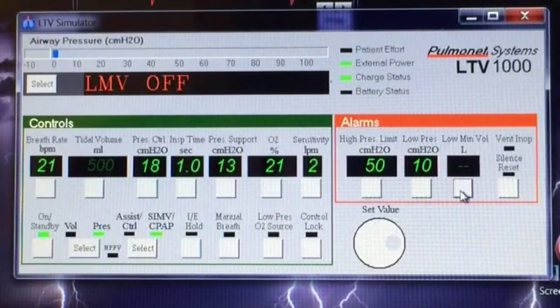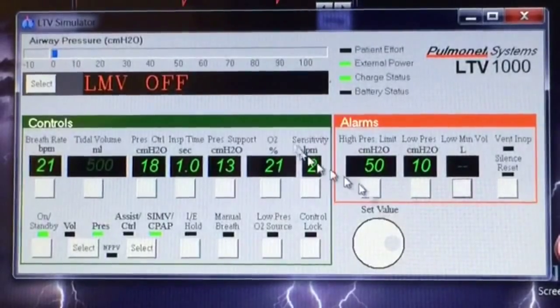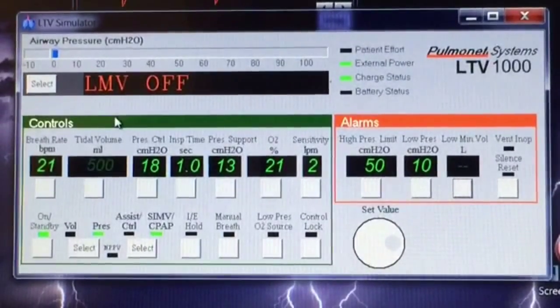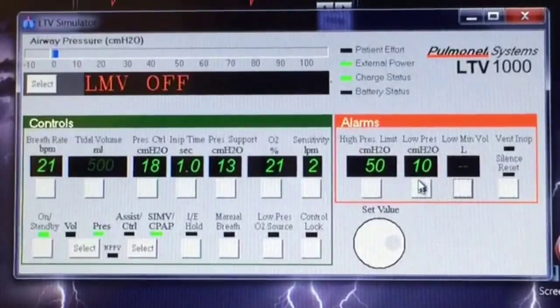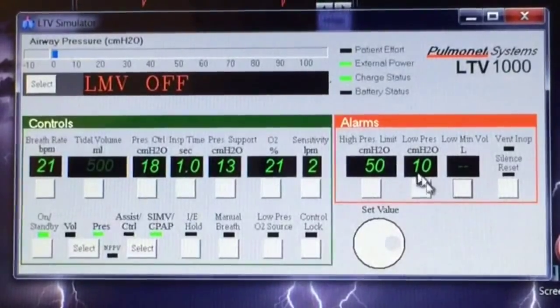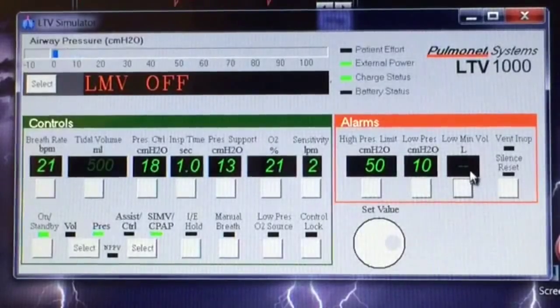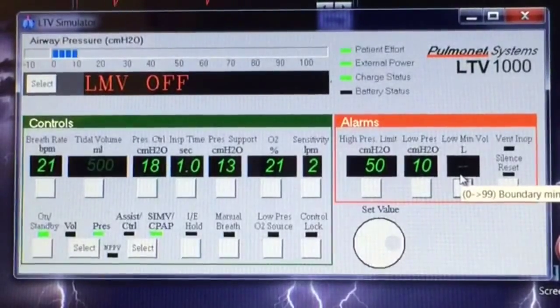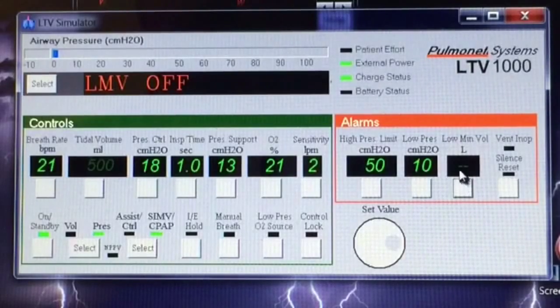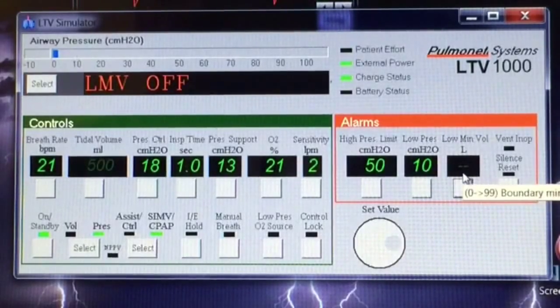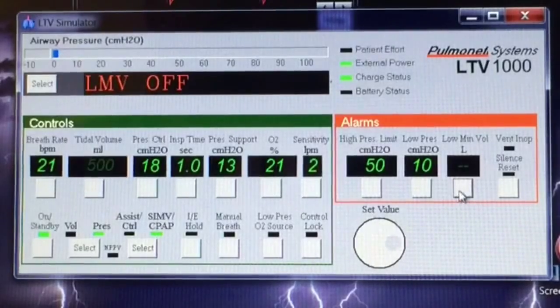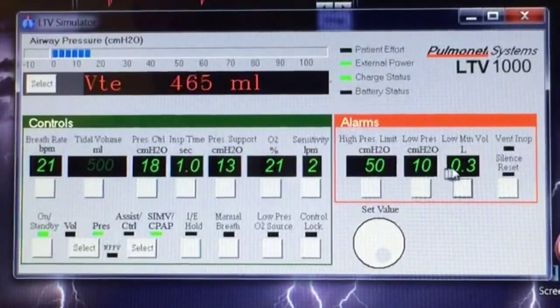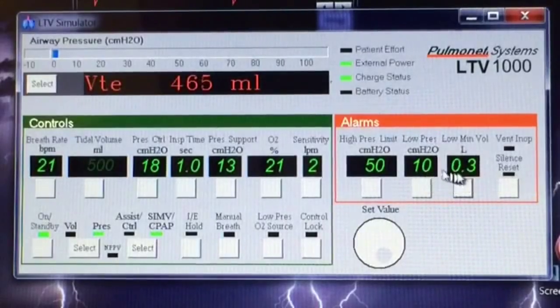The low minute volume alarm — the minute volume is how much air goes in and out of the patient's lungs every minute: all those breaths of air added up for the minute. This is kind of a backup alarm to the low pressure, because if they get disconnected and for some reason the low pressure alarm does not go off, then this is usually a backup. The only problem is that this low minute volume alarm is usually a nuisance alarm. It tends to alarm a lot, and because of that most people will turn it off, or the doctor will not order a low minute volume setting. I'll add a little bit in here — 0.3 — so that if they do become disconnected and the low pressure alarm does not go off, then this one will alarm.